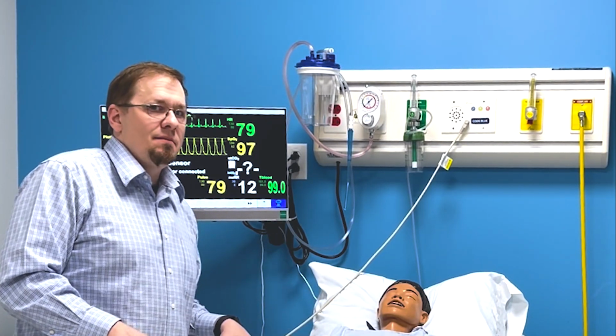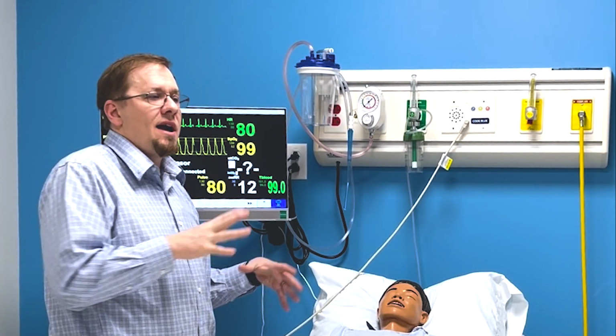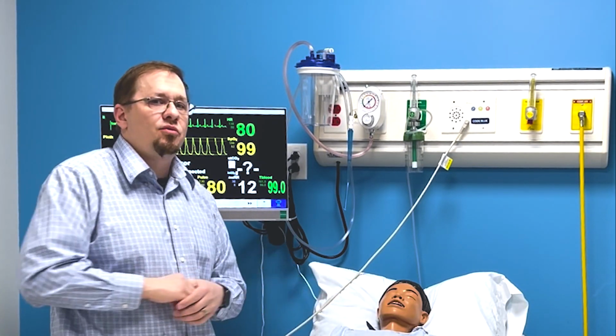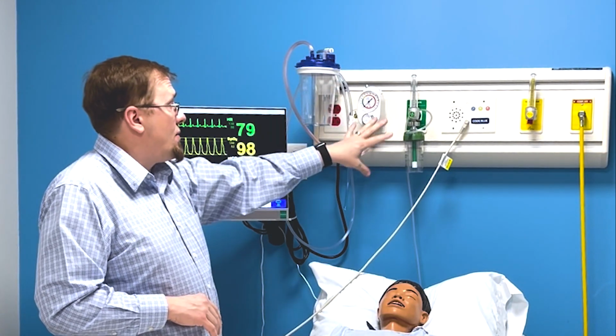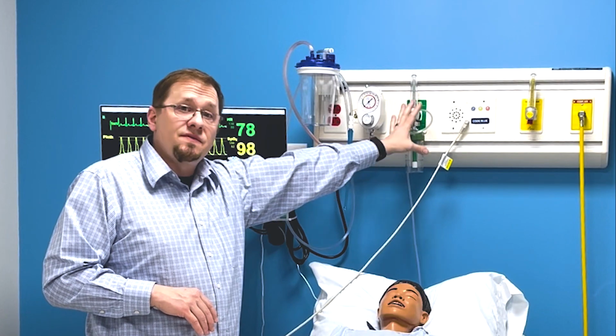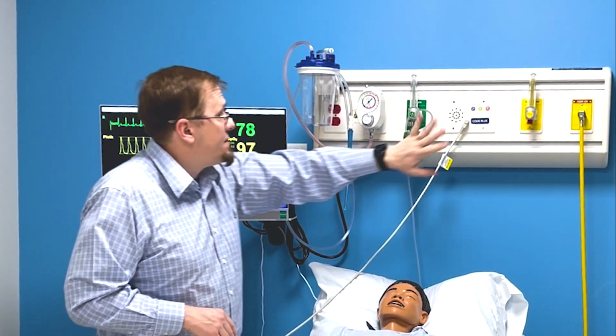And I tell them in sim, it has an added benefit: I can hear what you're doing, therefore I can make the patient respond appropriately. I go over the suction, how that works. I'll go over oxygen devices, flow rates, things like that. Then I always talk about my code blue.